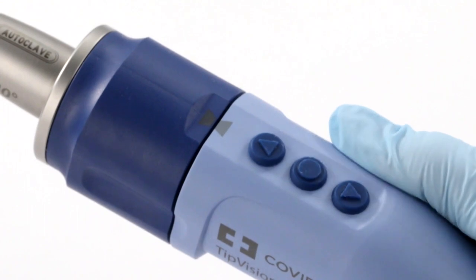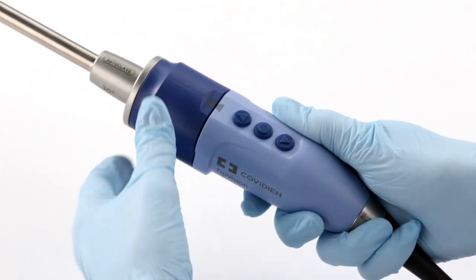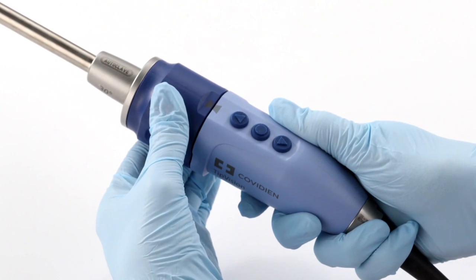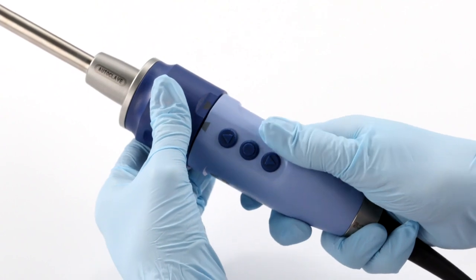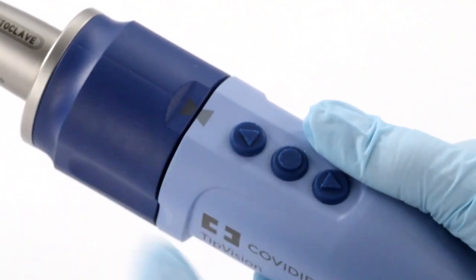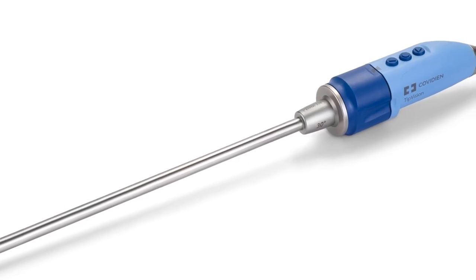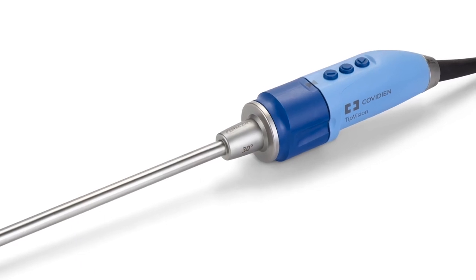The indicators are situated in the front of the video scope buttons on the handpiece and the horizon holder. To rotate the 30-degree scope, you'll need to hold the horizon holder, which is the dark blue section, in its horizontal orientation. Turn the handpiece to the left or right until you have found the desired viewing range, and finally go back to the home position again. Turn the handpiece until the tips of the two triangles are facing each other. The monitor will display a live image of your viewing range. When using tip vision, white balancing is not necessary unless the colors look unnatural. Tip vision is focus-free.